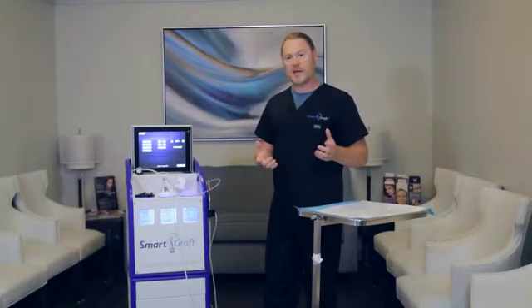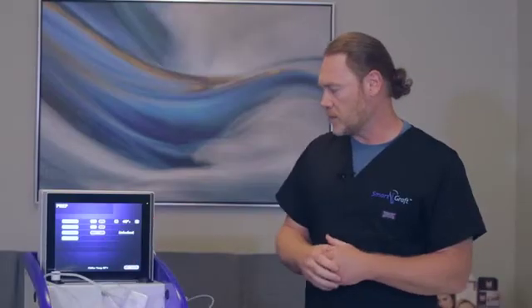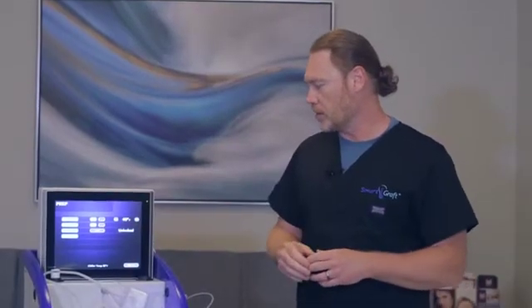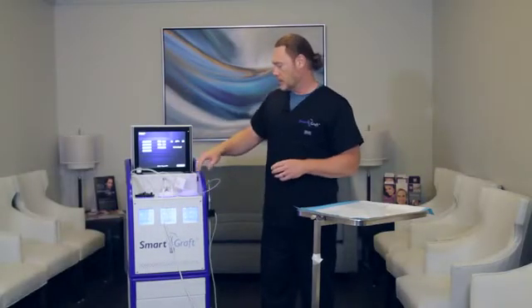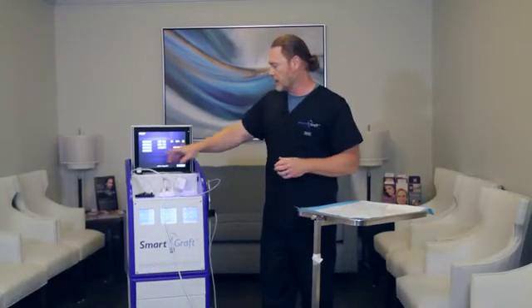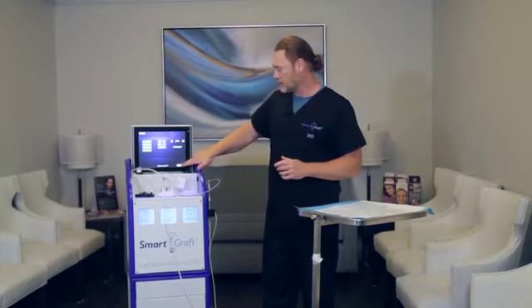Now after all of it's set up, we'll go over a little bit of functionality. We've covered this screen here — really just to turn on the chiller and the chiller light, so you can actually see the fluids to make sure that this does not overflow. And then you have the shower tube, which is all locked in. Down here you'll depress the next button.